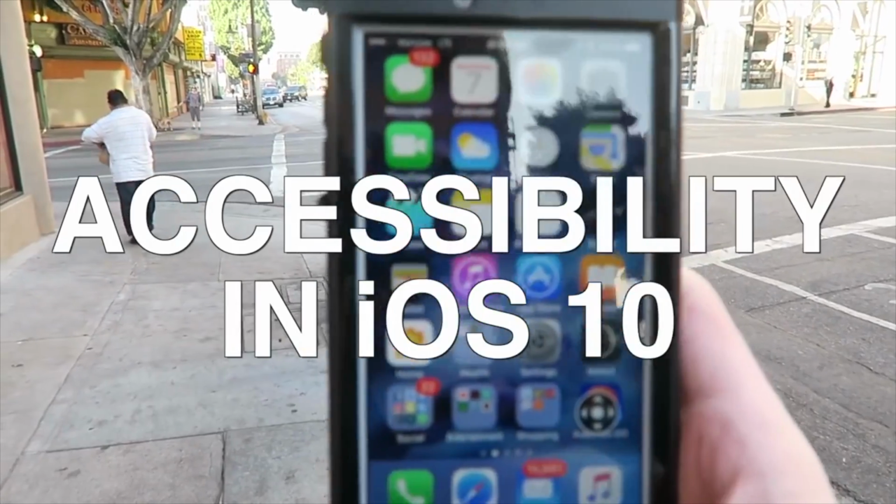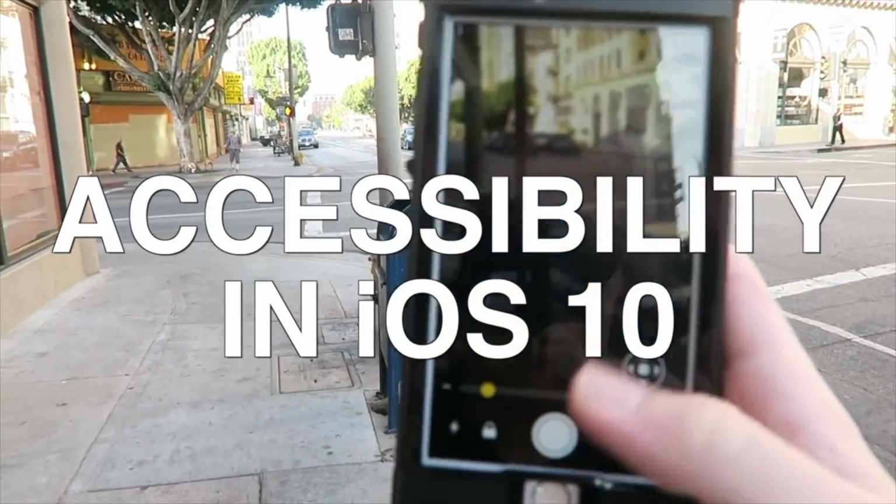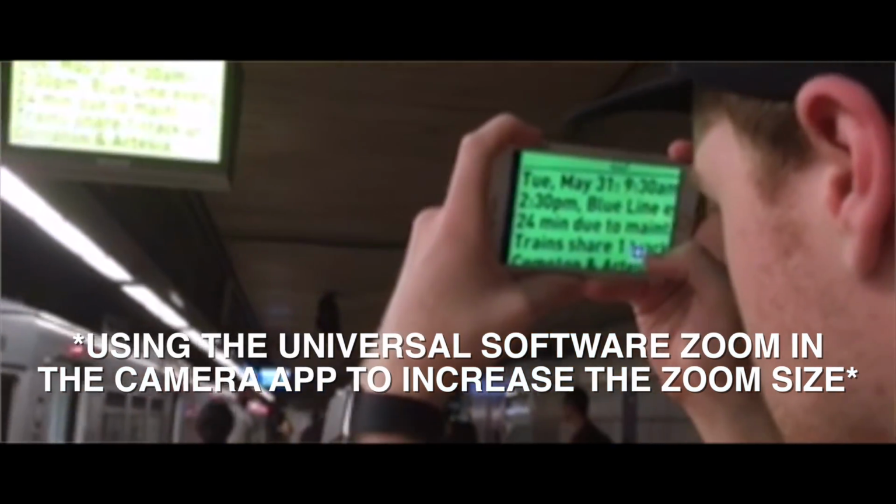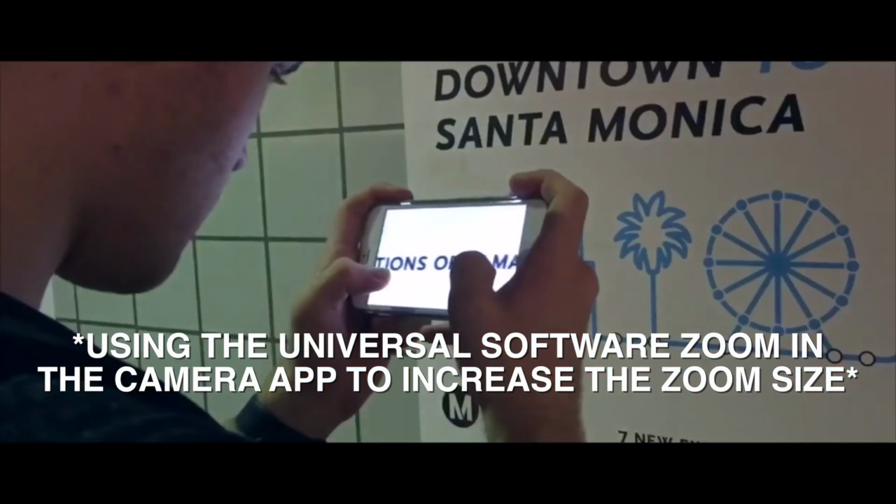There's a feature I talked about in my iOS 10 accessibility video called Magnifier, and I didn't talk too much on it, but I did talk about the premise, which is to act as a miniature digital magnifier that's built right into your phone. In the past, if I wanted to zoom into something using my phone, I'd be restricted to the camera app, and the problem with that is it doesn't have a whole lot of flexibility when it comes to zooming into things.